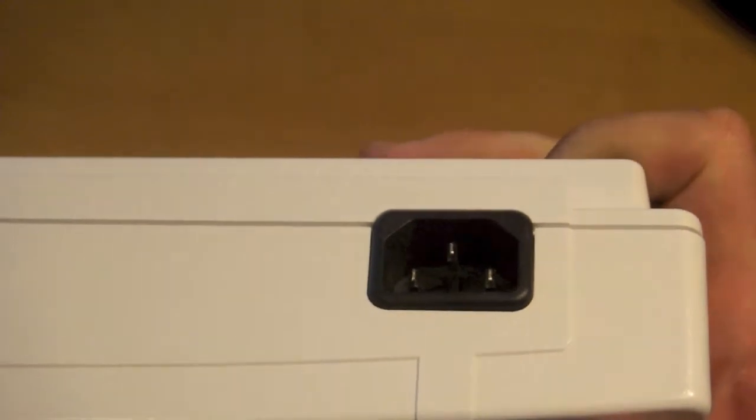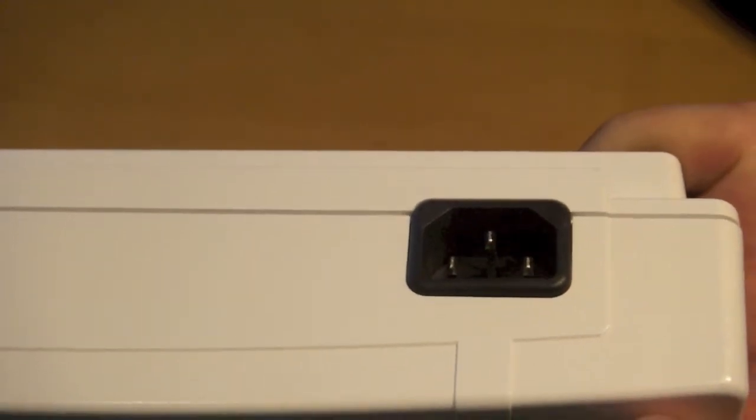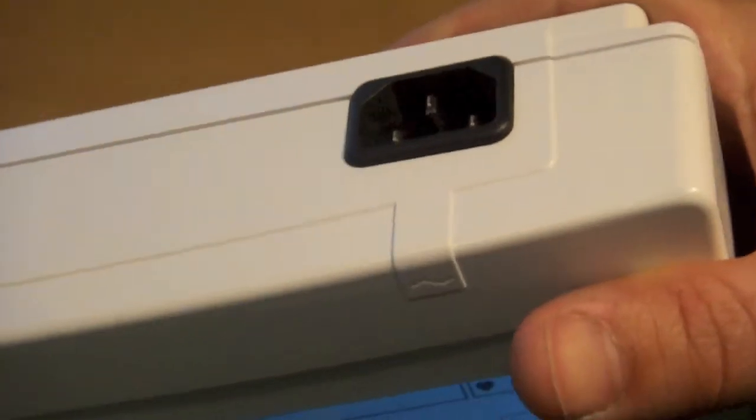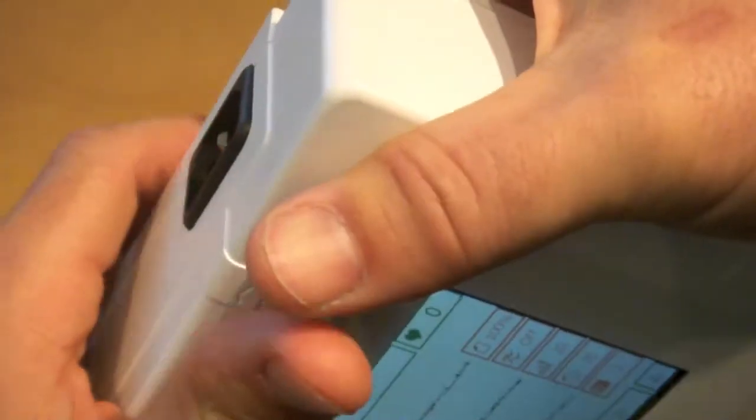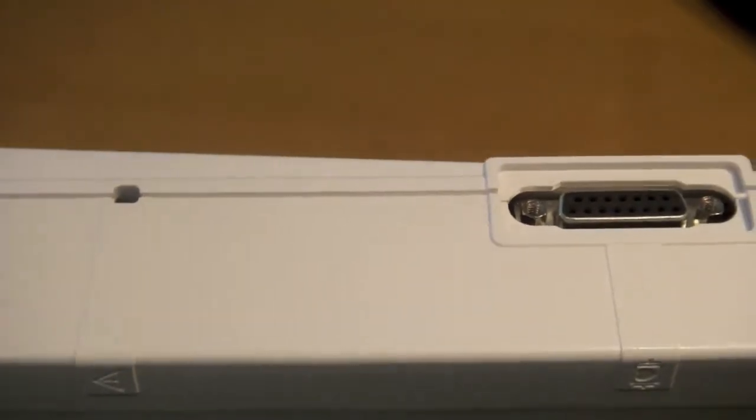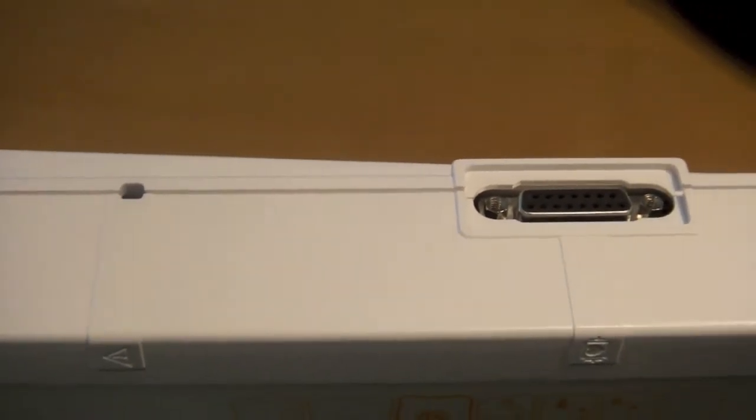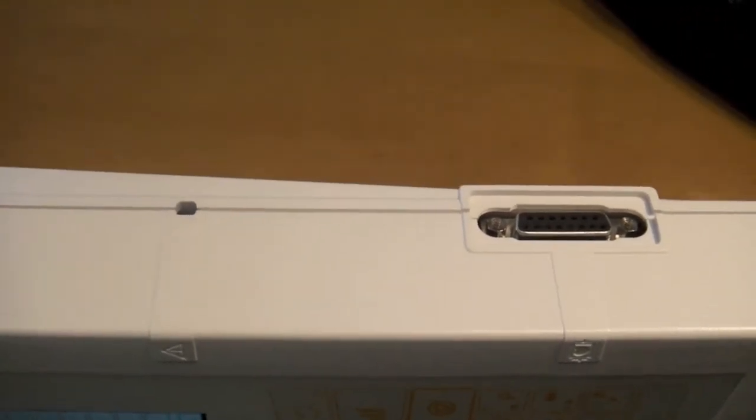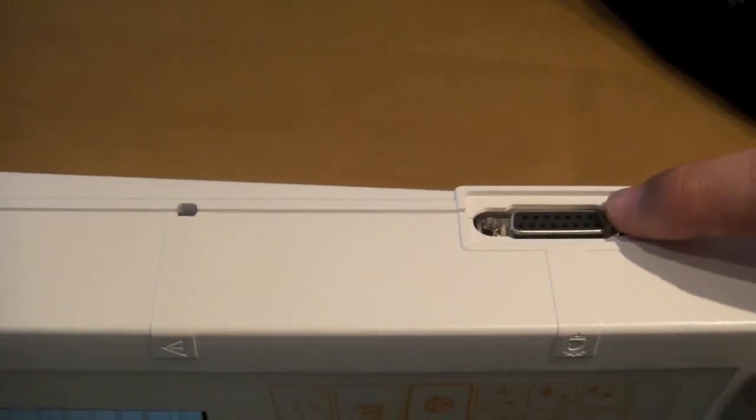On the top of the machine is the power button and a power socket, an IEC power socket. On the right side of the machine is a reset button and room for the patient cable.